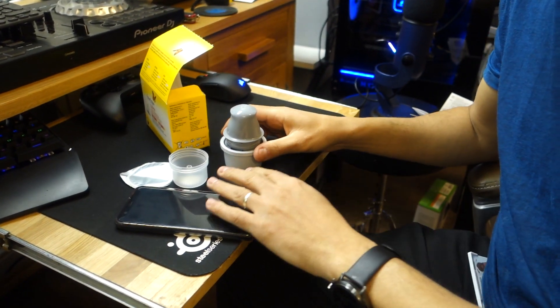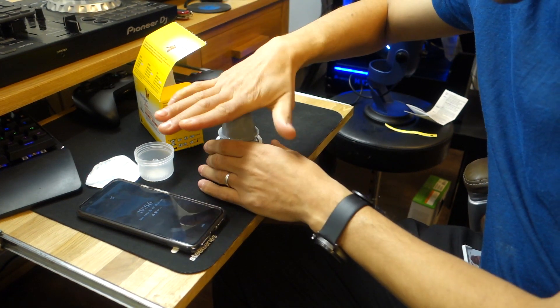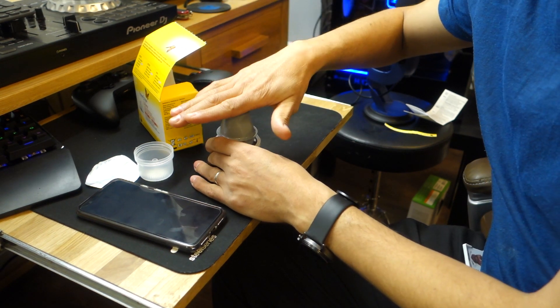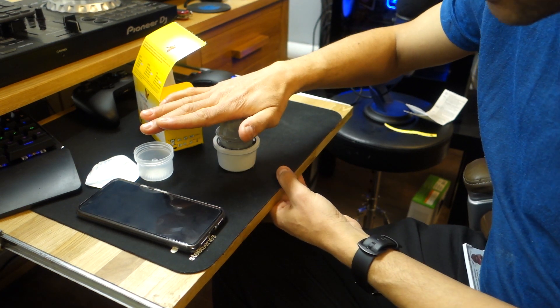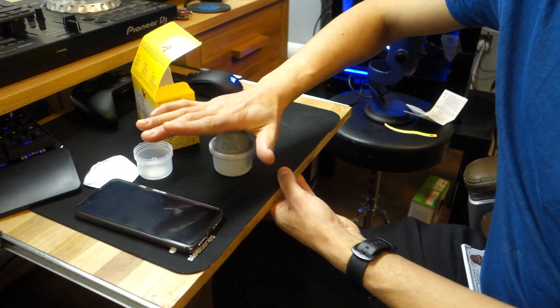Touch wood, I've never failed a sensor — it's always worked. I had a couple of bleeders but nothing major so I ignore them. I've never had to remove a sensor. So put it together like that, and the best thing to do is put it on somewhere flat. When you press, you need to press vertically — don't angle it or twist it, just keep it straight.